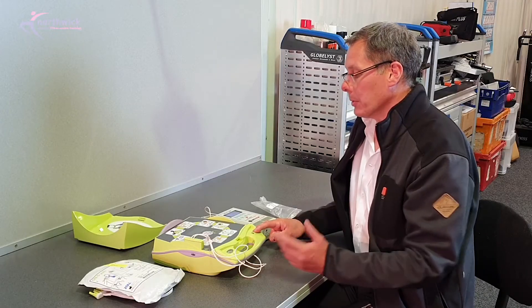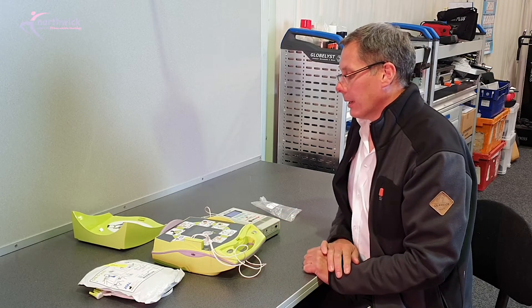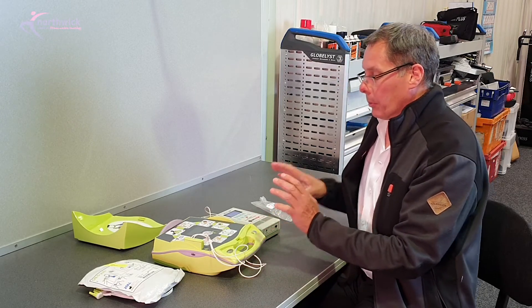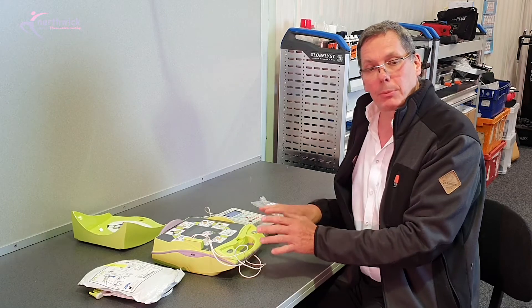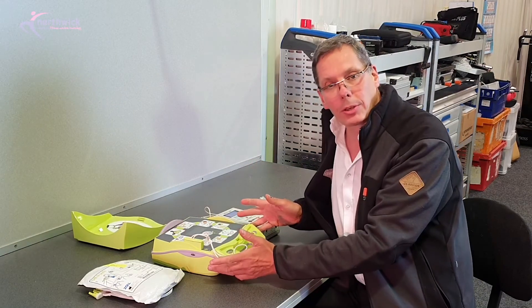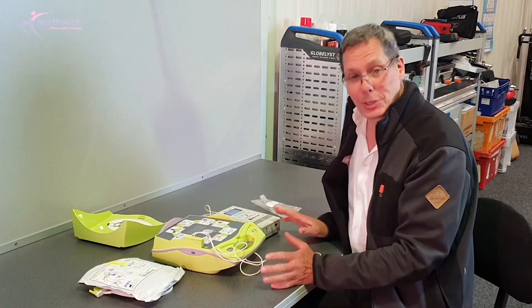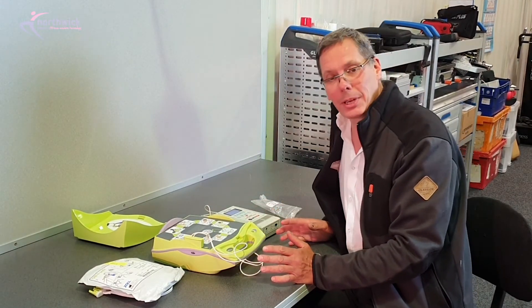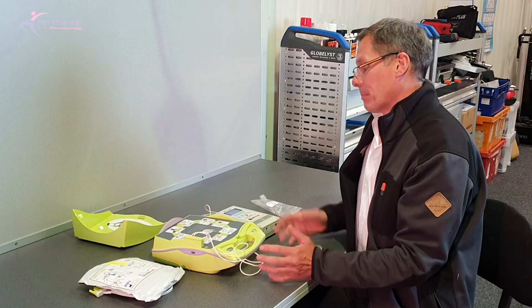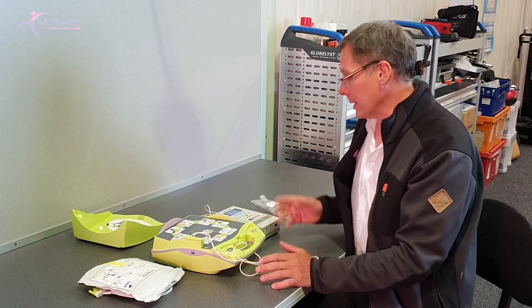What that sequence of testing demonstrates is that when the AED should deliver a shock, that it delivers a shock, and when it shouldn't deliver a shock, that it doesn't deliver a shock. That's really really important. There's no way you can test it. You need specialist test equipment for that. That's the best way of testing it in the field that we know of.